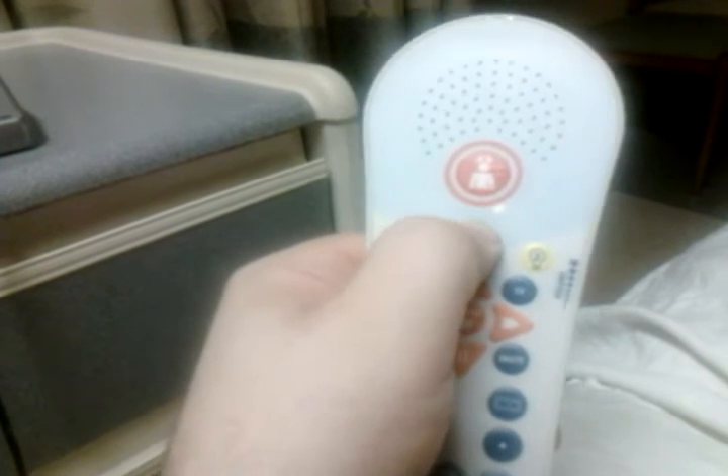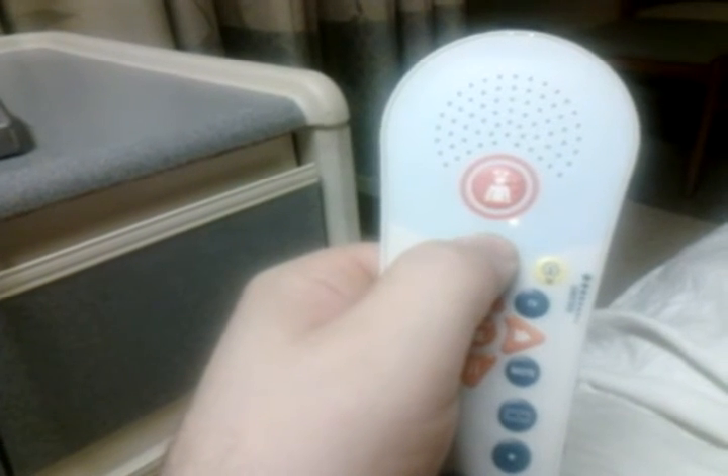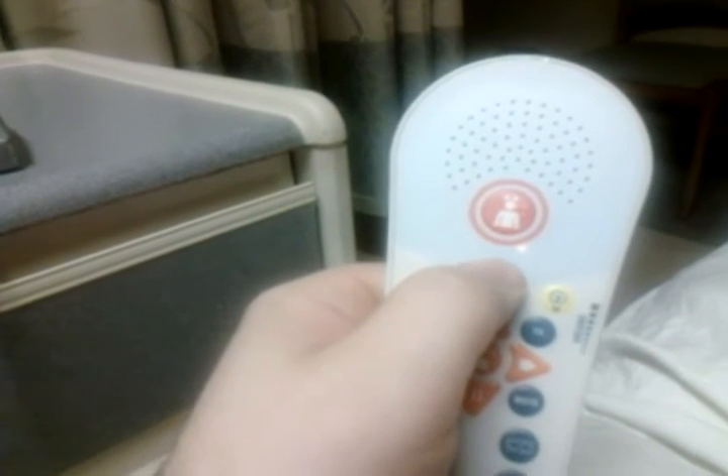That's the TV on/off. I have it on now, but I'll shut it so you can watch it boot up. Now the TV is off — there's the TV off in the distance. I hope you can make out there's a red light on it in the lower right corner. When I press the button on the remote, it fades in and out a couple times, the screen lights up, turns blue, and you get channel two, which is WCBS here in New York.